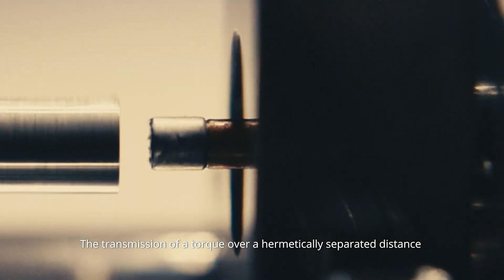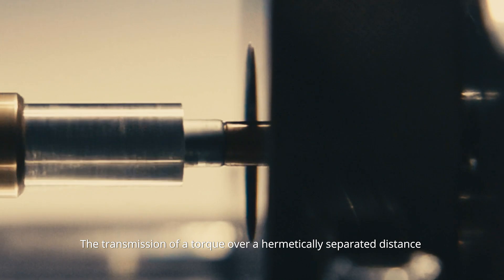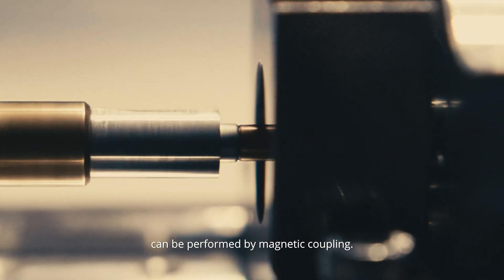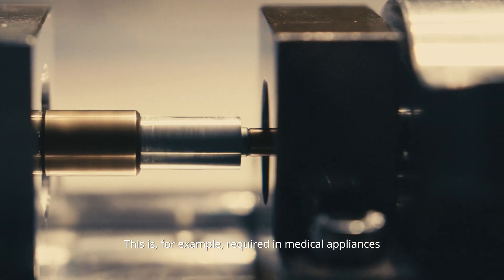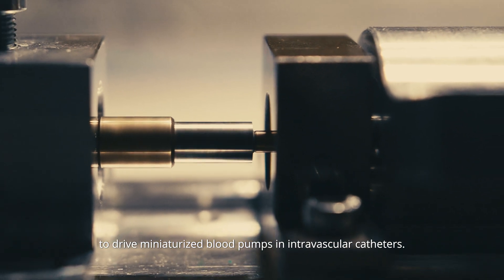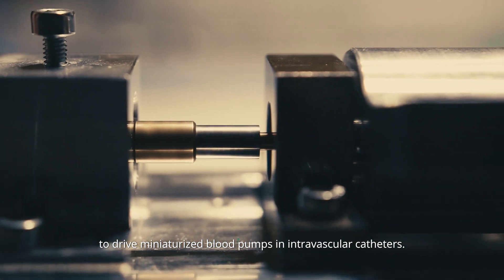The transmission of torque over a hermetically separated distance can be performed by magnetic coupling. This is, for example, required in medical appliances to drive miniaturized blood pumps in intravascular catheters.